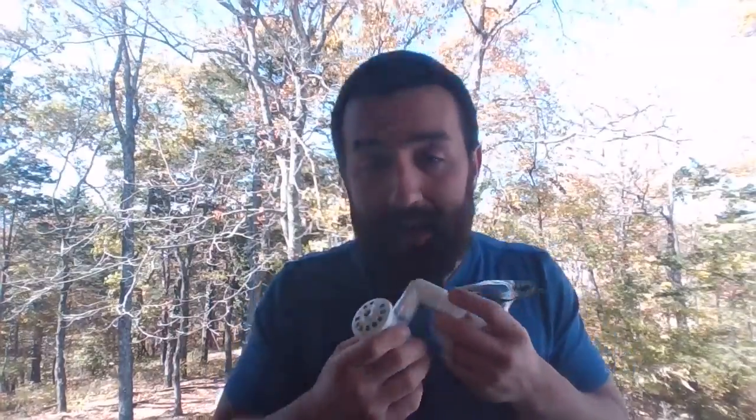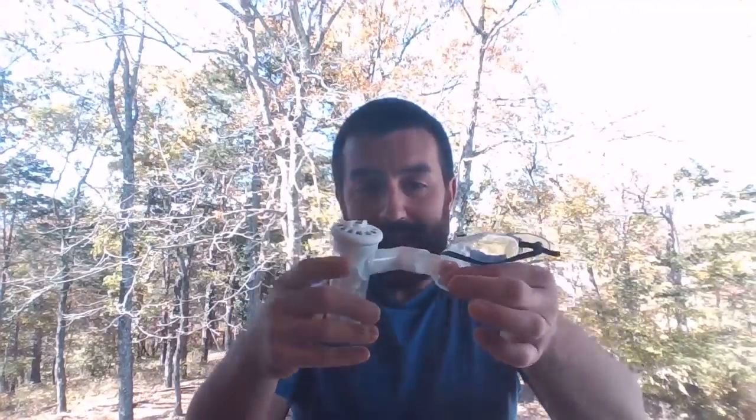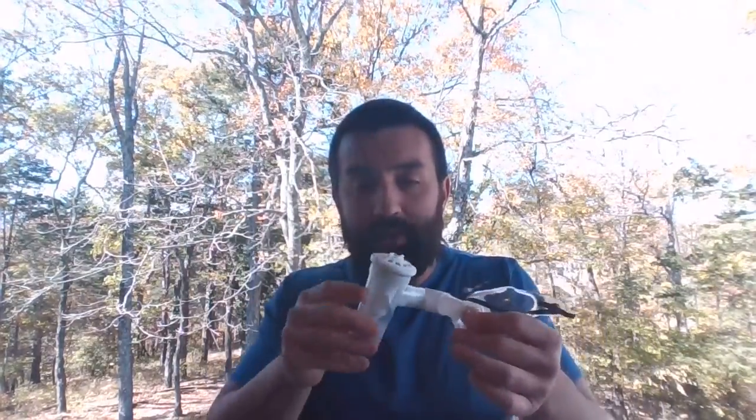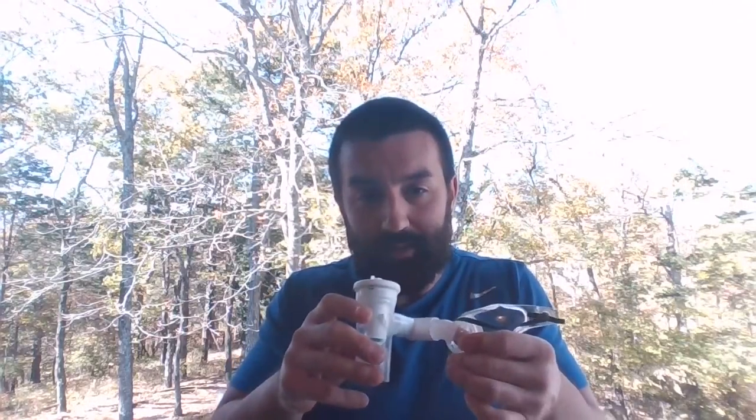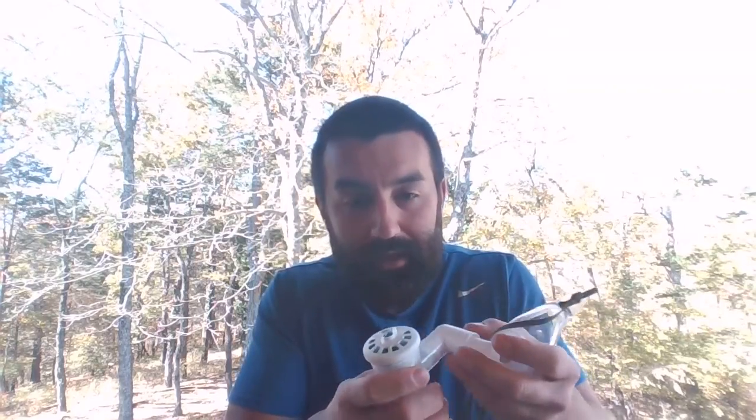Okay, it allows you, for most of our patients, to be able to make a little bit of manipulation. But a lot of times you have the trach patient that maybe can't cooperate with you really well, and maybe can't sit upright. Maybe they've got a big chest, and you can't get that thing to sit flat. So once again, the more volume that is laying in this thing as it starts to sputter and not give us that aerosol output anymore, and the treatment's over, the less of that dose the patient really got.